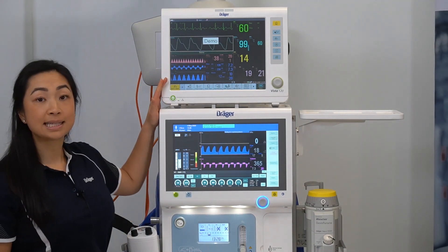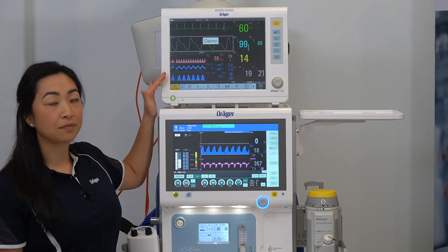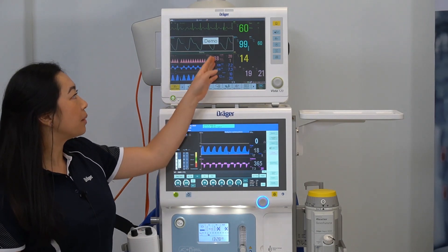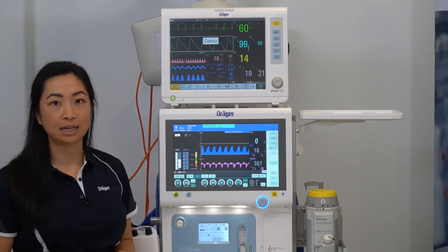Here you can see the ventilation parameters clearly displayed on the Vista 120, with information being transferred across from the anaesthetic machine.